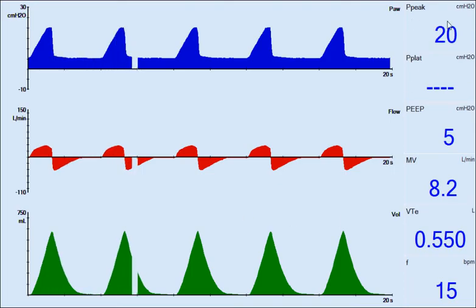Notice that our peak pressure is 20 and our tidal volume right now is 550 with the current rise time setting.